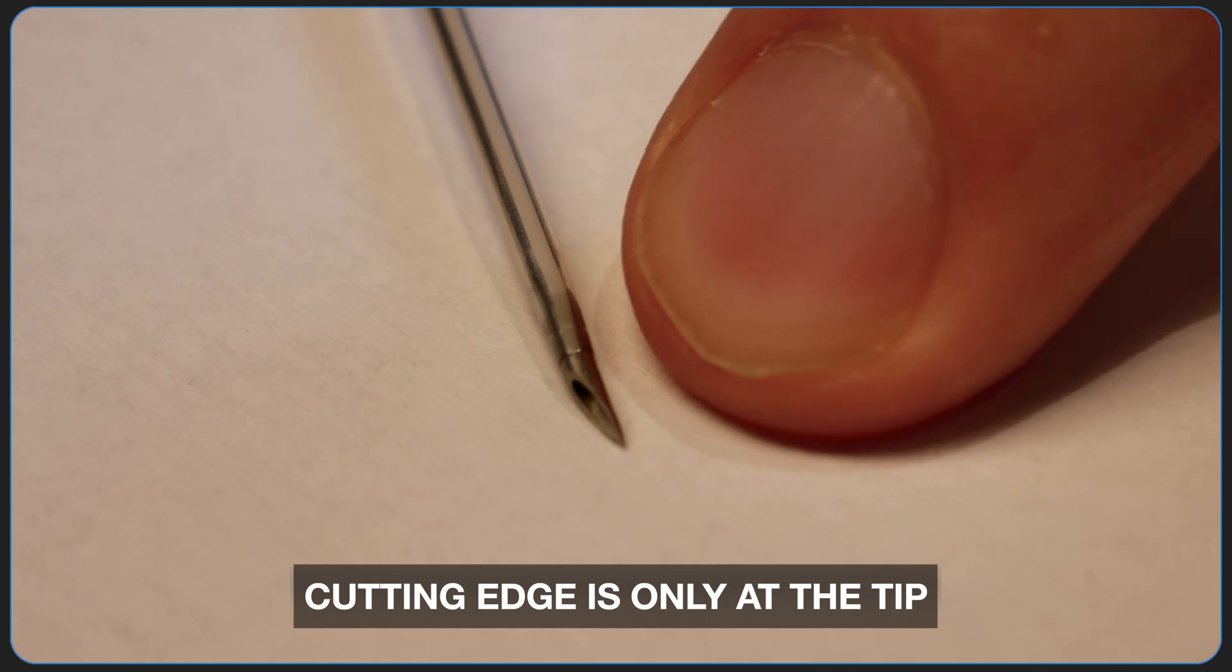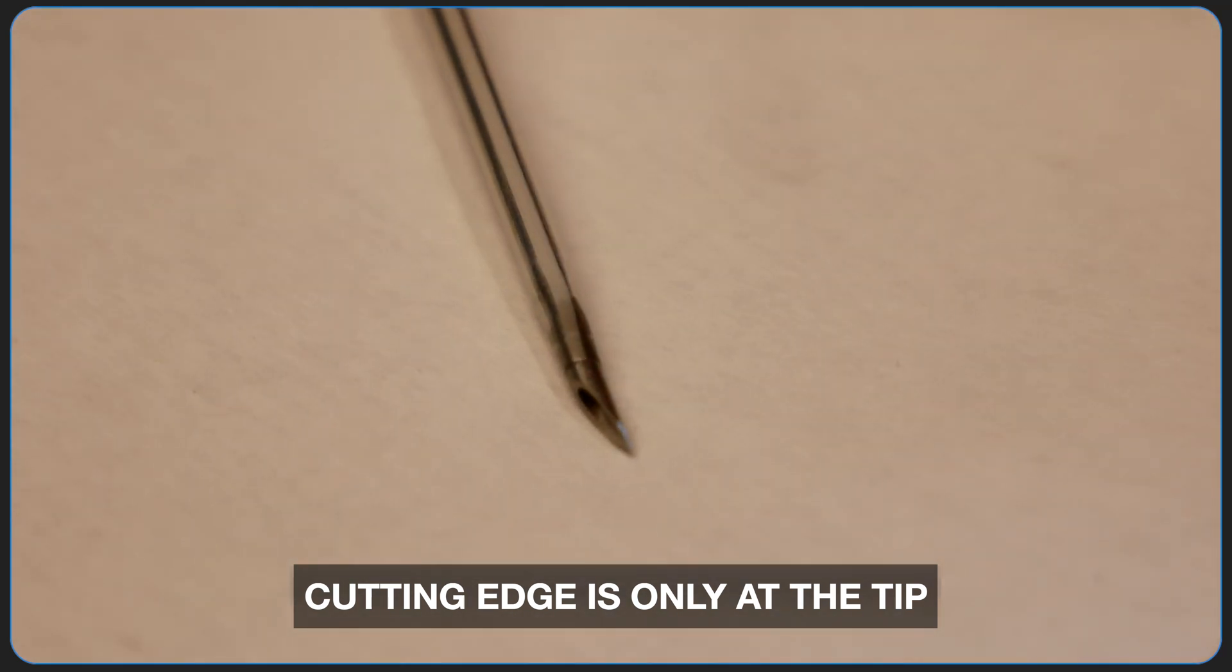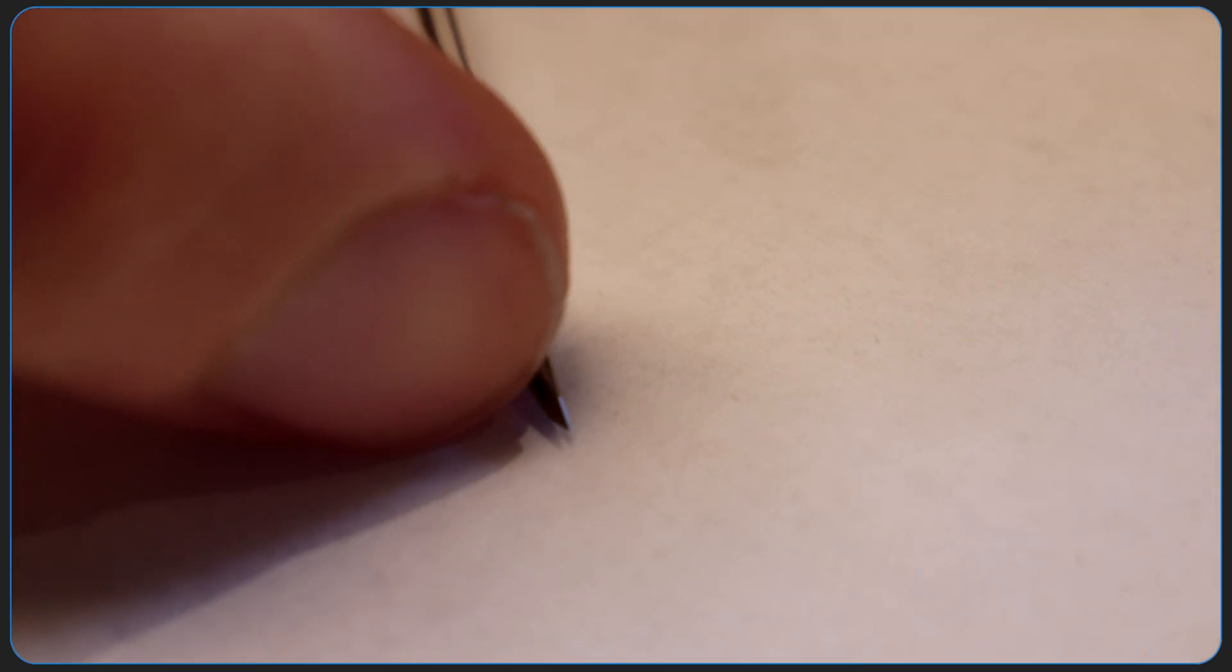The reason that's so important to understand is that it means the only part of the bevel that is cutting is this tip. In other words even though you have what could be seen as a cutting part right here at the bottom that's not actually cutting.